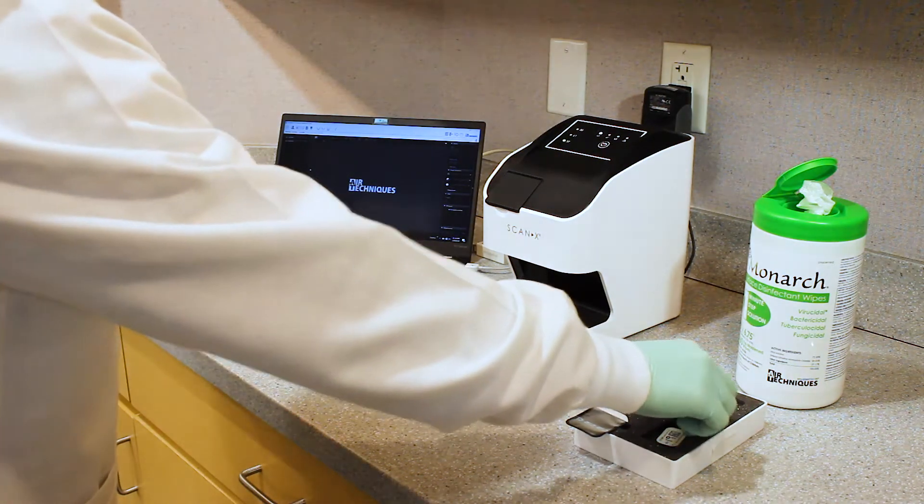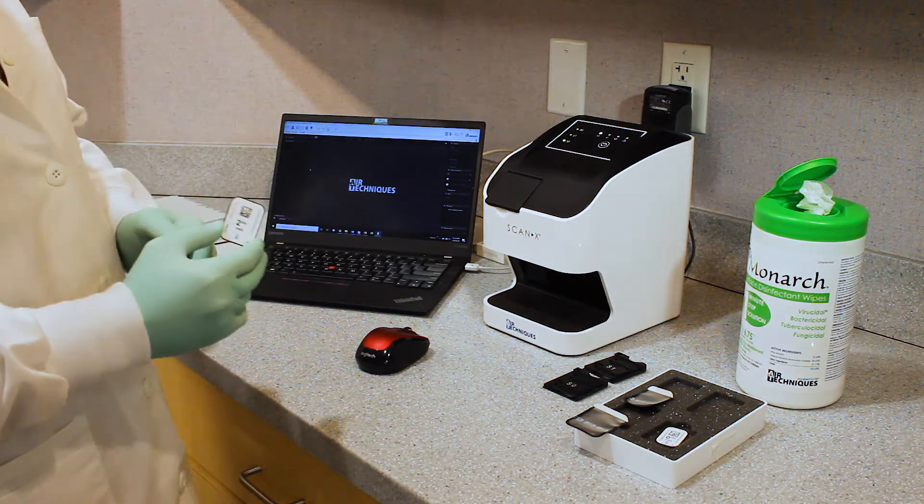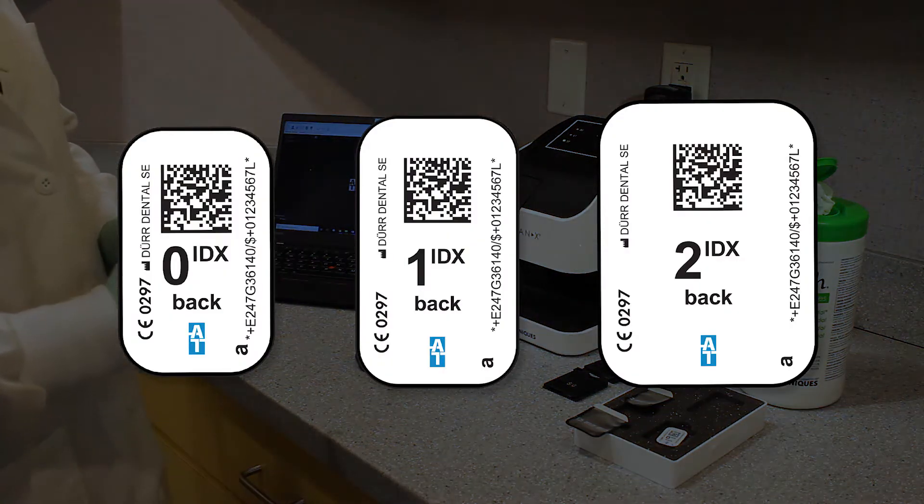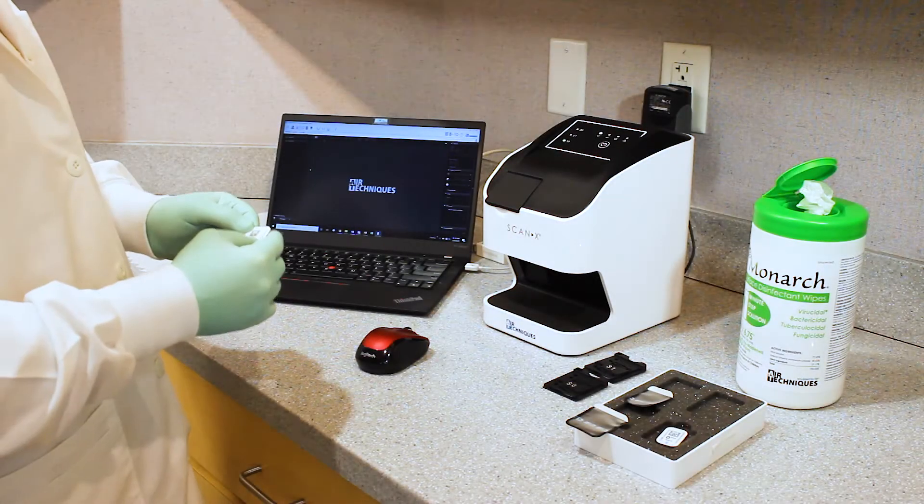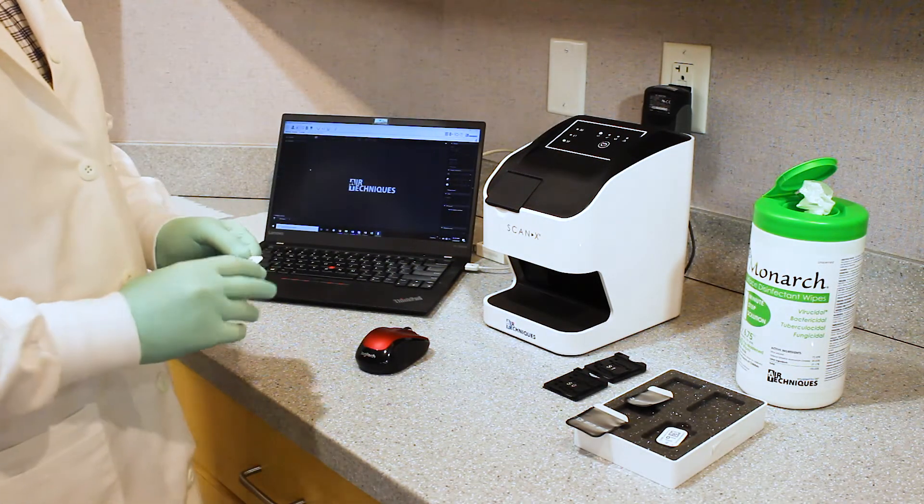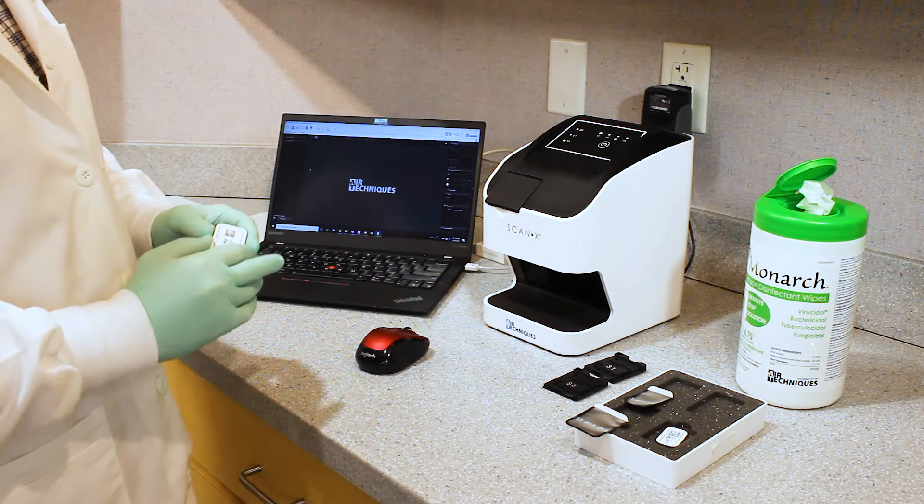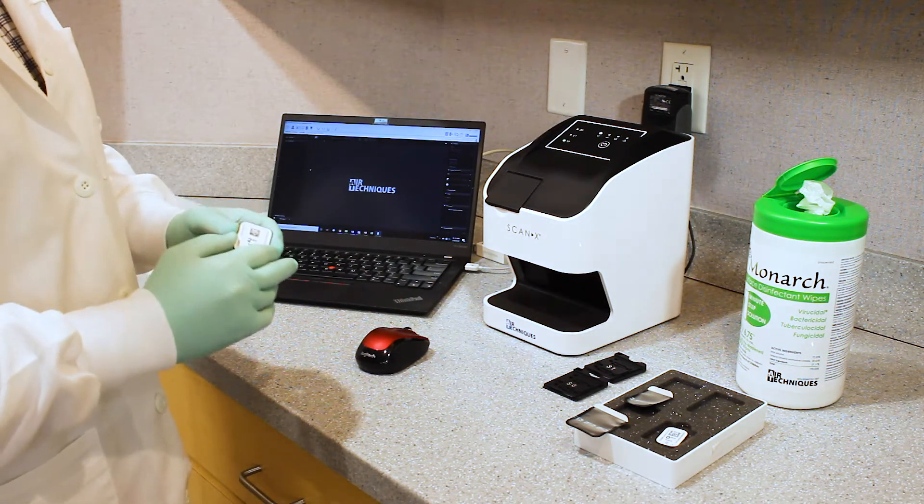Important to note is this scanner is using our new IDX PSPs, which have an RFID antenna built onto the plate, and that will communicate to the scanner. So this scanner is only going to be able to acquire images from the Air Techniques IDX plates.